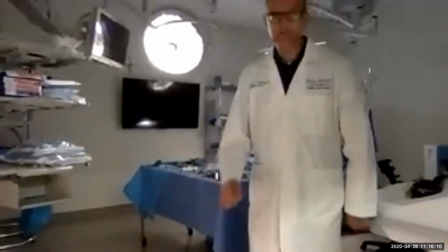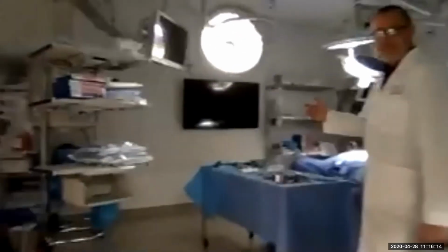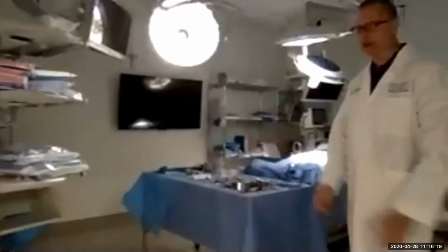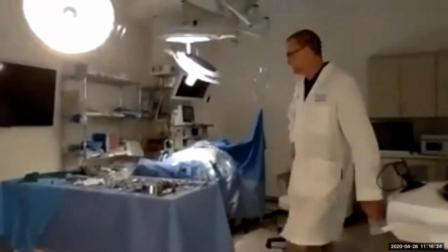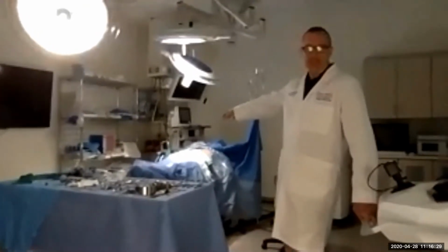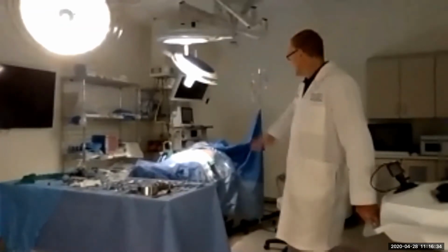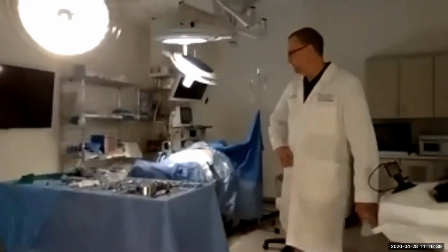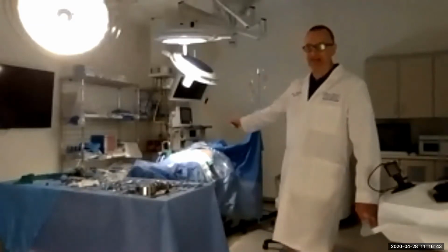If you go in this room, you're going to see our operating suite, operating room. And if you have either had an operation or if you have been in an OR, maybe in a shadowing opportunity, or your parents have worked in that environment and taken you there, you'll see that this looks exactly like an OR. The patient that you see is what we call an anesthesia mannequin, for lack of a better term. And the machine back there is an actual anesthesia machine, and so if we choose to do this, we can run a simulation as if he was having an operation.